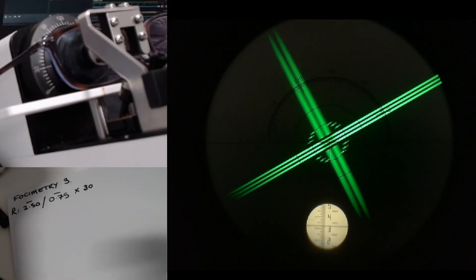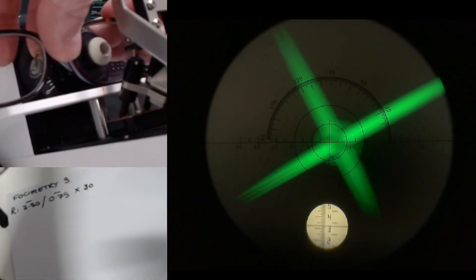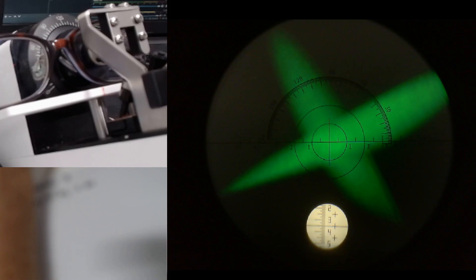I'm going to make sure that's in the middle and I'm going to dot the centres — that looks good. Then we're going to move over to the left eye. I'm going to start with the prescription way up in the plus, bringing it down towards the minus.